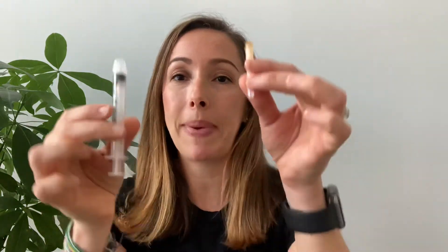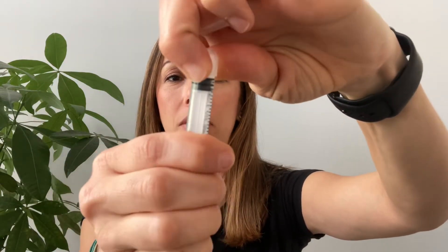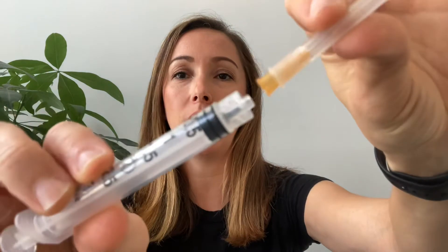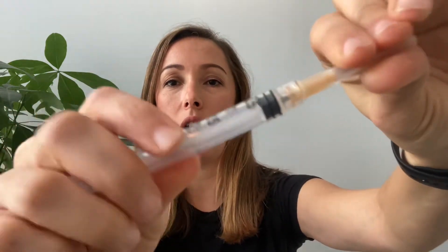The first thing we're going to do is piece together the syringe. On top of your syringe there's a little cover — you can twist or pull it off. Then you're simply twisting the needle onto the syringe. It's a simple twist, twist, twist — make sure it's tight. That's pretty much all you have to do.